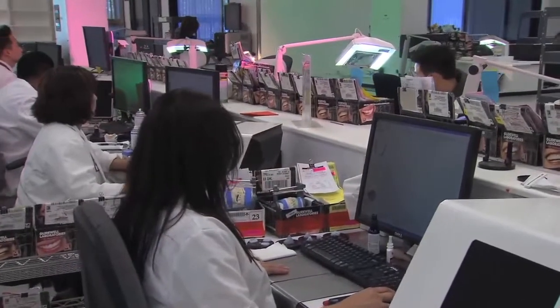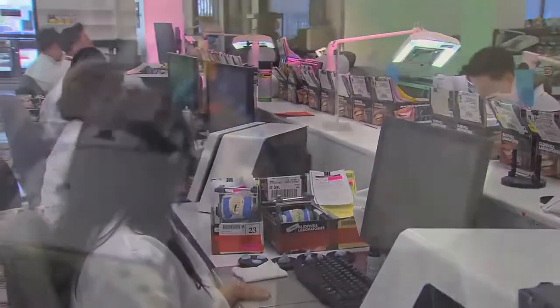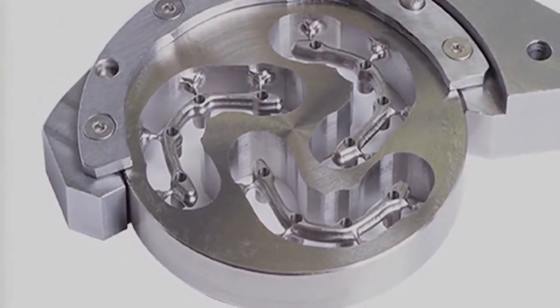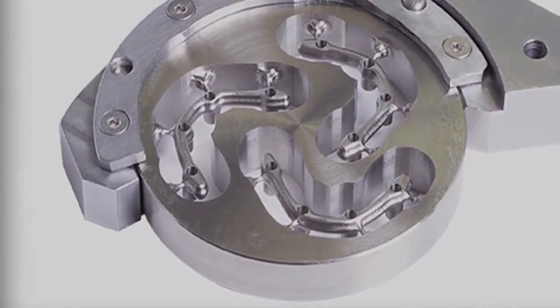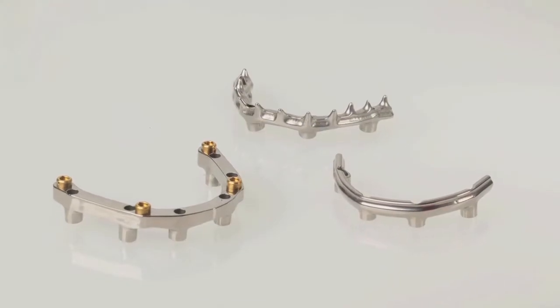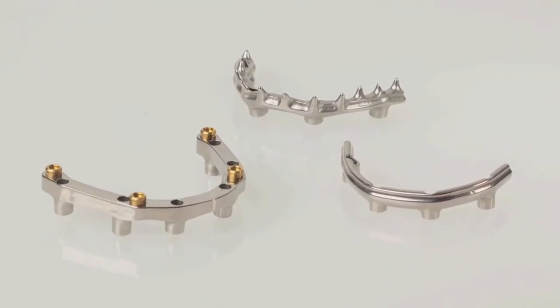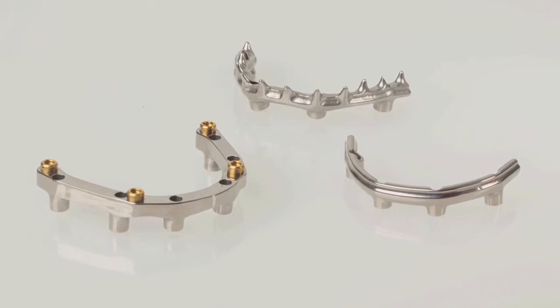State-of-the-art processes utilizing digital manufacturing technology to create titanium bars serve to eliminate the guesswork associated with traditional casting techniques. This technology enables Glidewell laboratories to offer inclusive CAD-CAM milled bars that are more accurate, less expensive, superior in strength, and faster to produce than conventional cast bars.